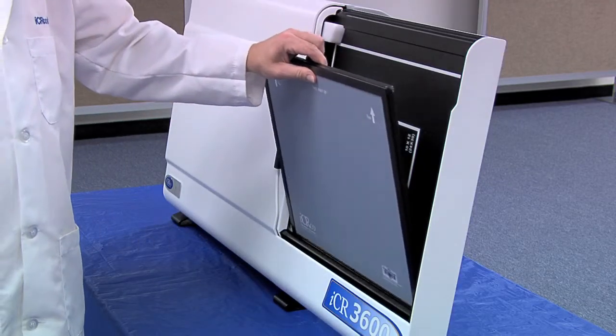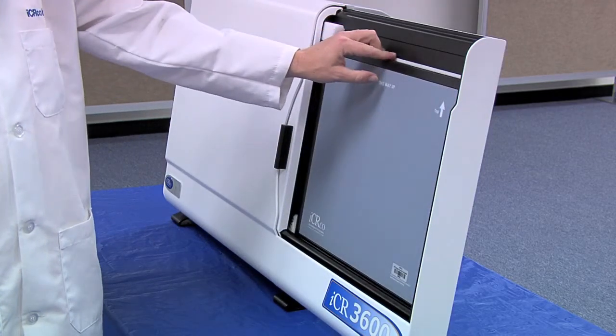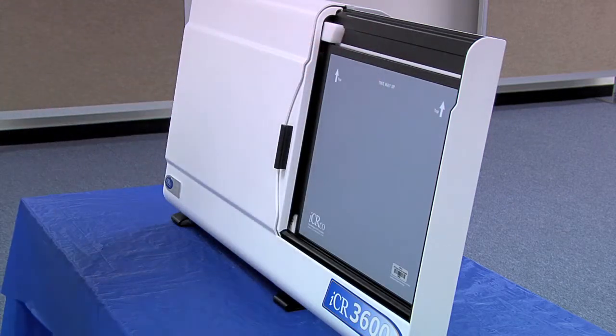At an angle, load the cassette bottom first into the scan bar. Gently push the top of the cassette into place.